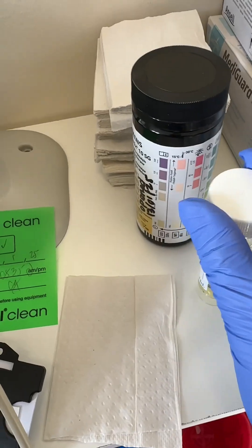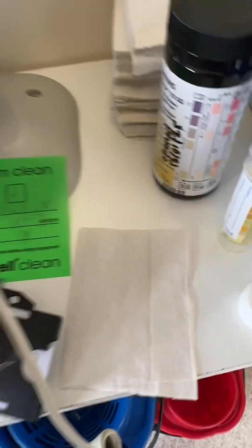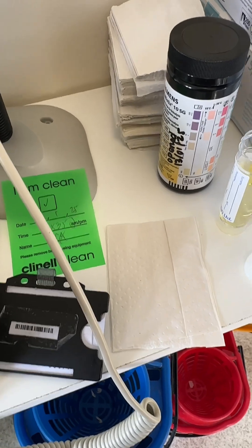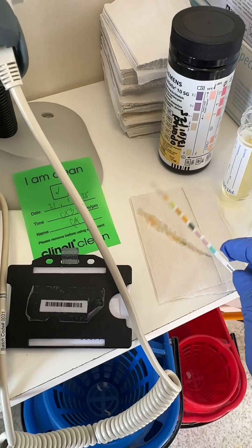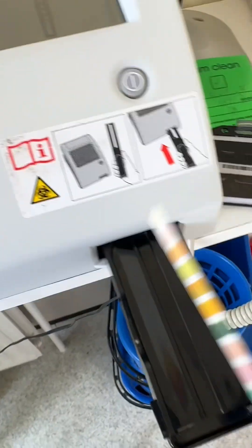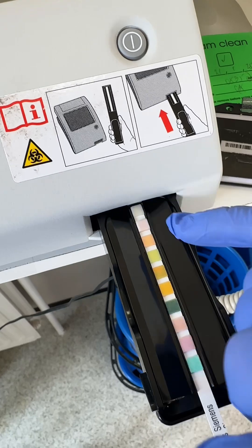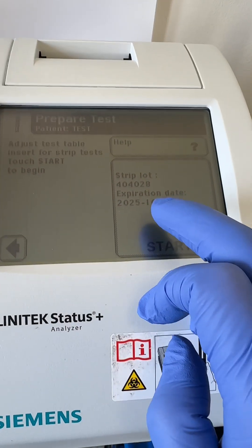Now open your urine sample and dip the strip up to the white indicator pad. Then blot the strip on the side of the container — excess urine can cause the machine to error. You don't want it too dry or too wet, just blot it. Then place the strip on the cassette, making sure it's all the way in and secure. Once that's set, press the Start button.